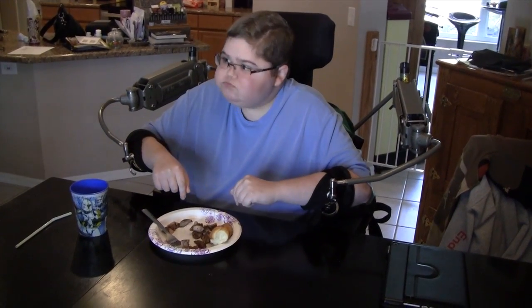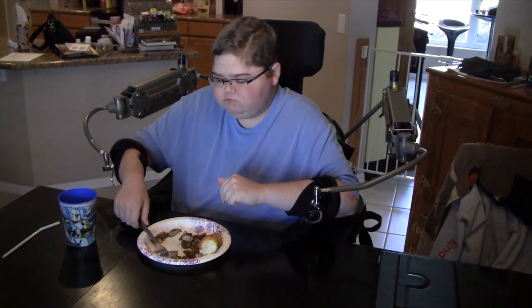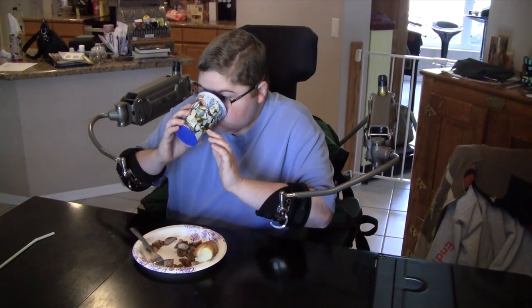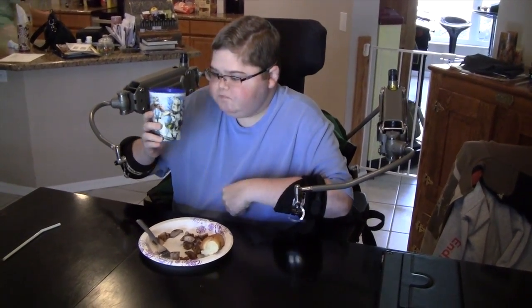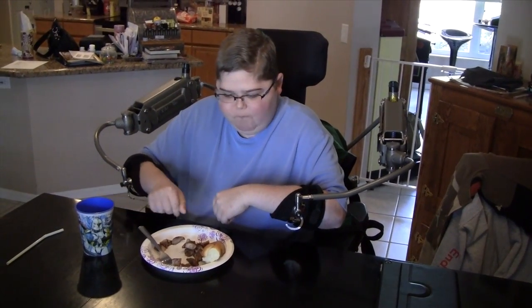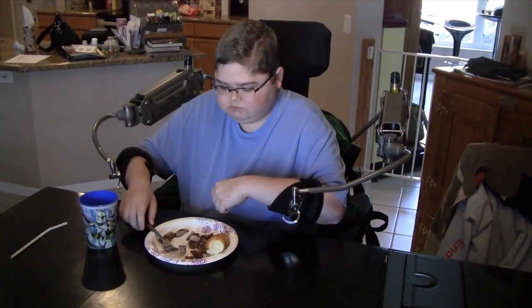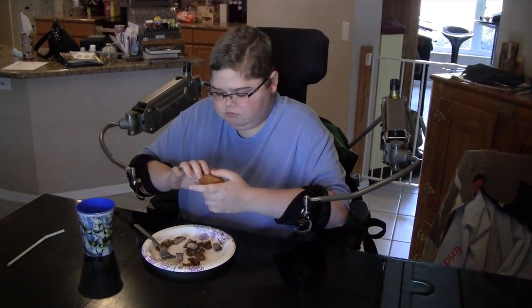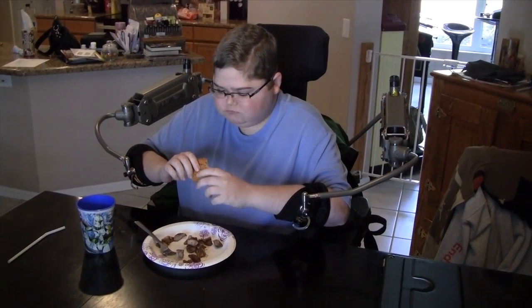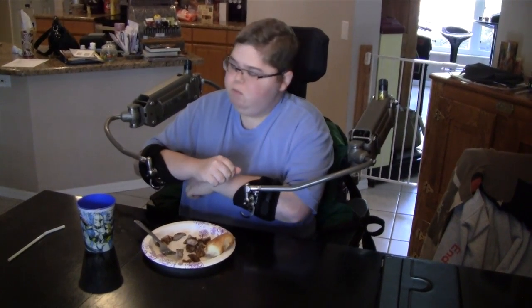It's less cumbersome and his elbows are no longer on the table in a leveraged form. He's now drinking and eating without any real assistance. Subsequently, he's going to be able to drink when he's not at the table as well, because he'll still be able to pick up a glass off the table, drive around with it, sit in his favorite area to watch TV, and still have full access to eating in an unhampered way.